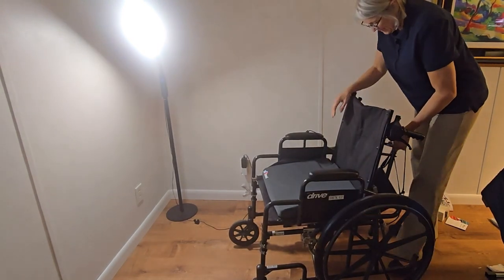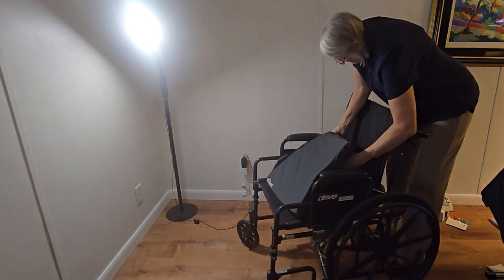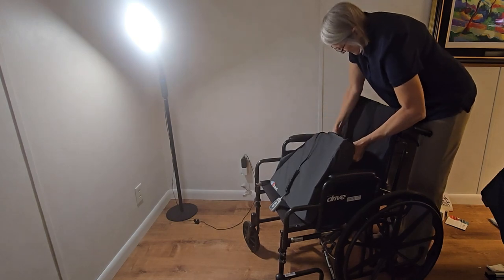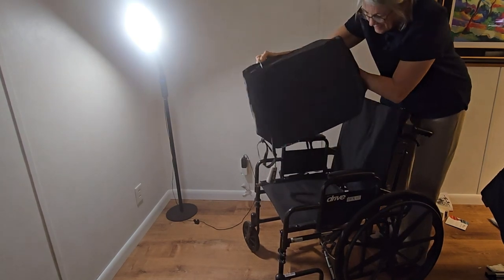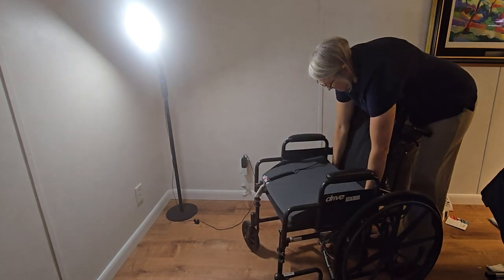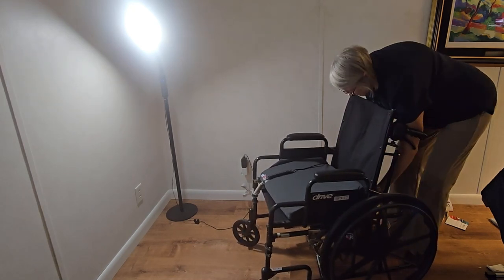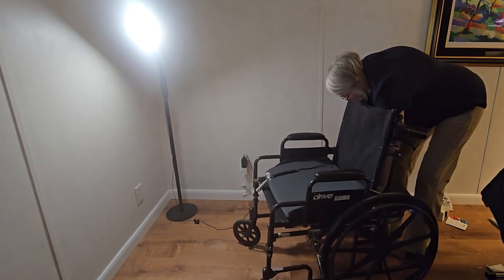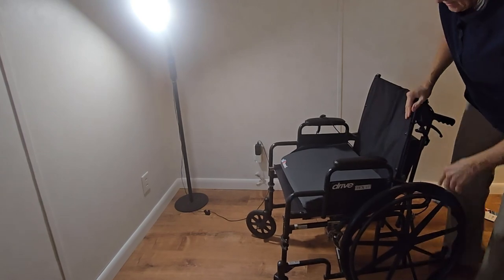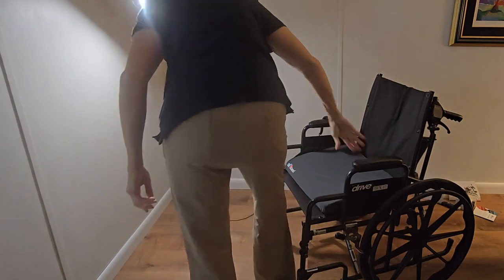Shell's going to uninstall and reinstall it. That's all there is to uninstalling it. Okay, here's the seat — let's slide this right behind the seat, and leave this out of the way so I'll sit on it. Always lock your wheels, at least one side. Have good balance — one lock is all I need.